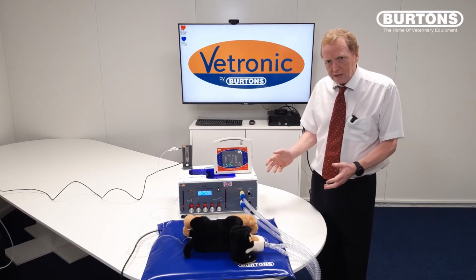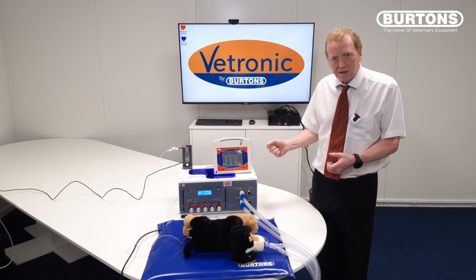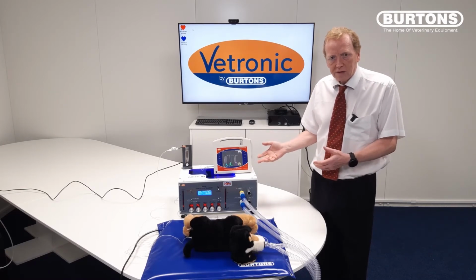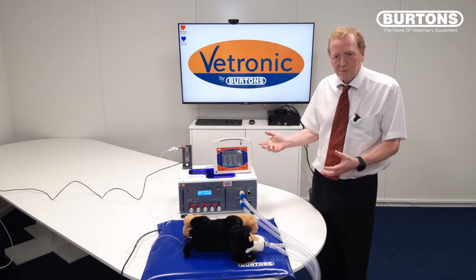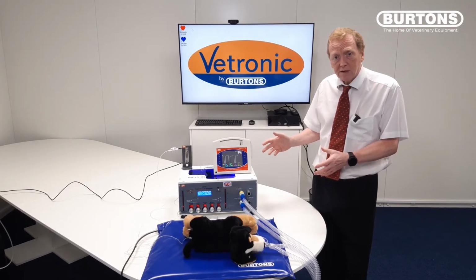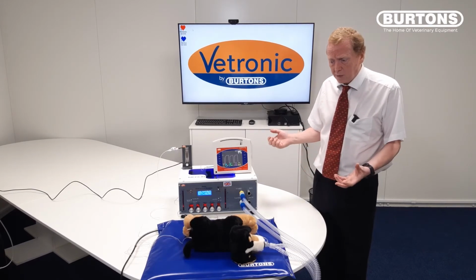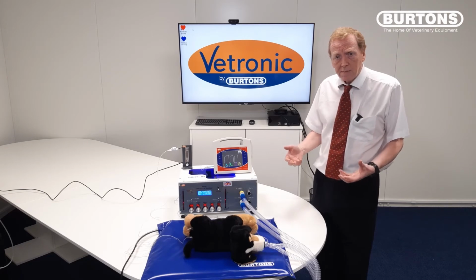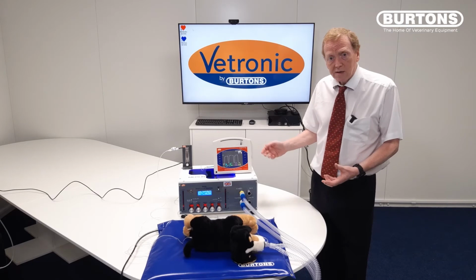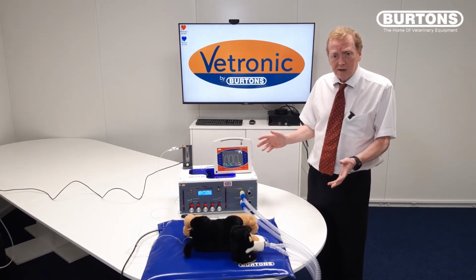The idea of the Annequin is to simulate situations and ventilation scenarios where you can learn the effects of overventilation, underventilation, effects of dead space, things like that. And as such, it doesn't necessarily have to have a ventilator. You could use a manual breathing bag and a non-rebreathing or a rebreathing circuit and simulate ventilation manually. But for the purposes of today, I'm going to use a ventilator, and I'm using Merlin. But again, by the same token, any other ventilator will have the same effect.